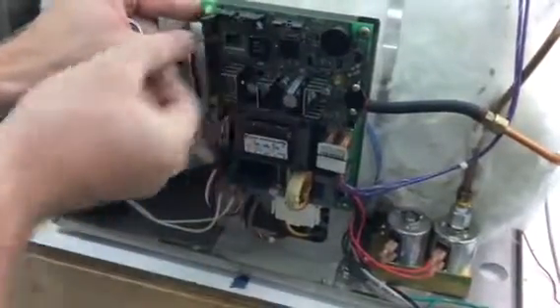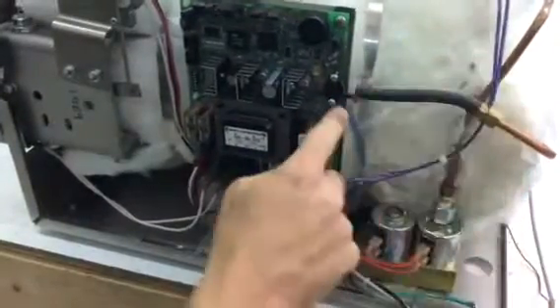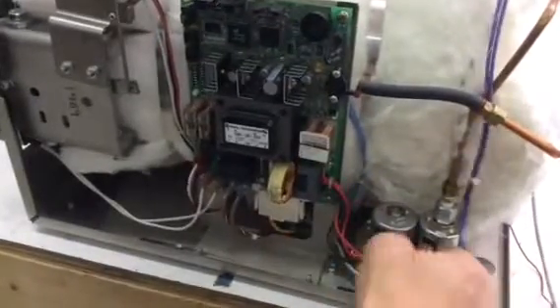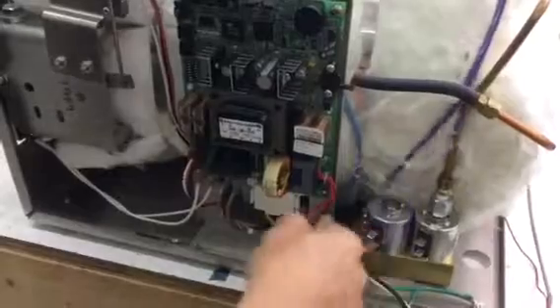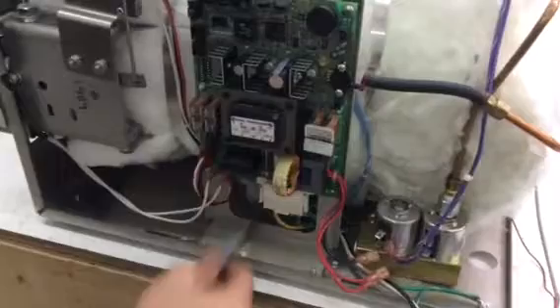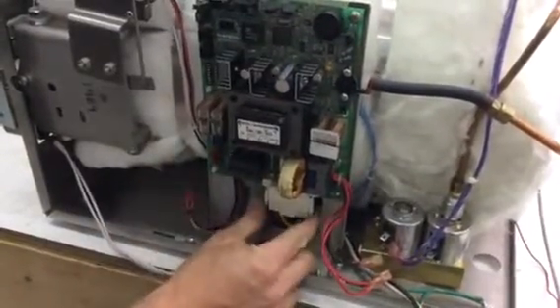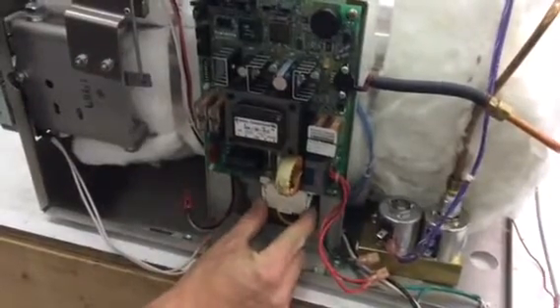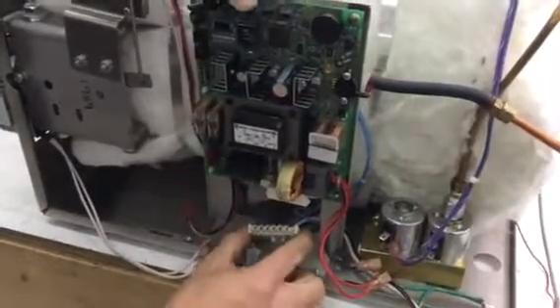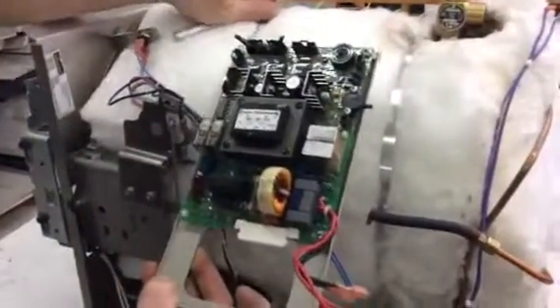Be careful when disconnecting the wires. The digital display plugs in here — flip these open and pull the display out. This is your pressure transducer — pull that off and don't break the nipple off. You have wires for a valve here, an air valve here, fill and vent valves down here — unscrew those. Your heating element wires are right here, then your door motor. Then there's this big molex connector on the bottom — push on those tabs and pull down, and that will release the board.